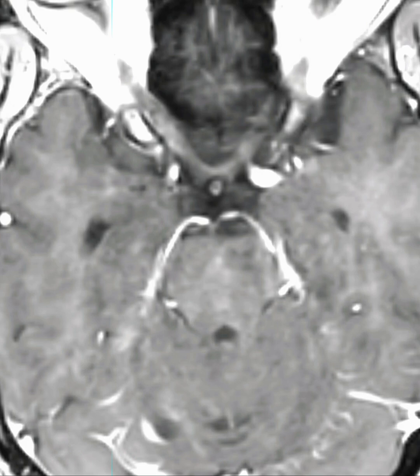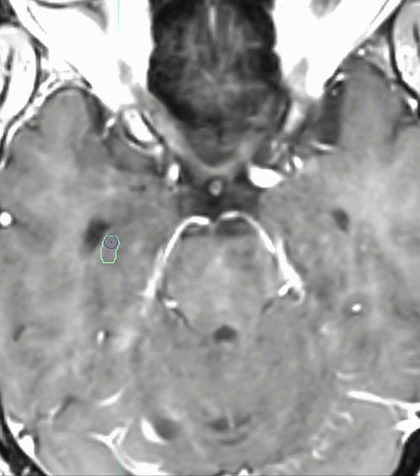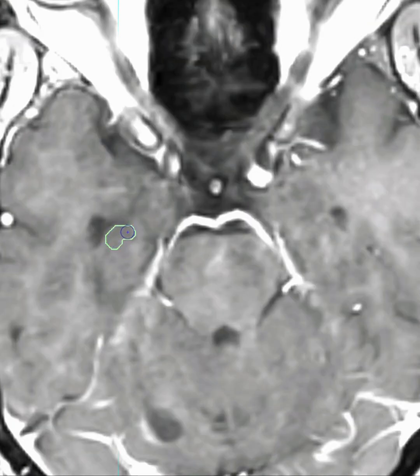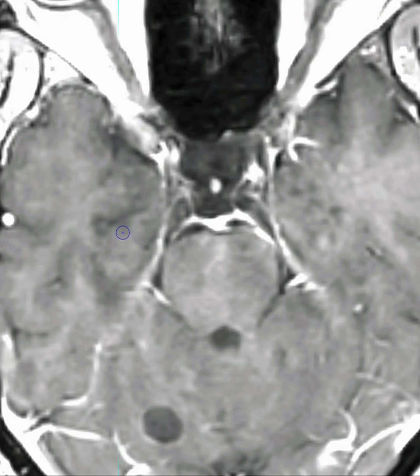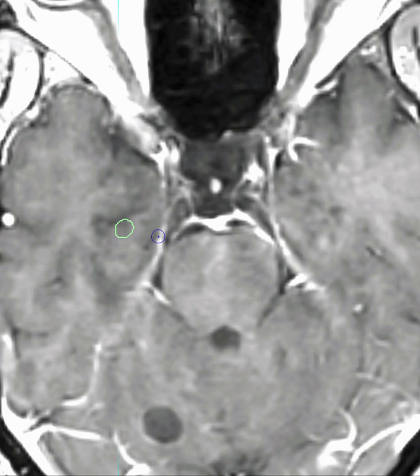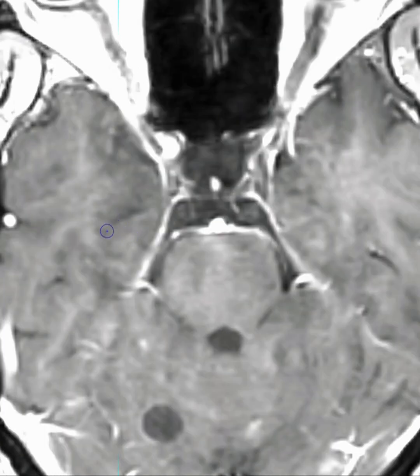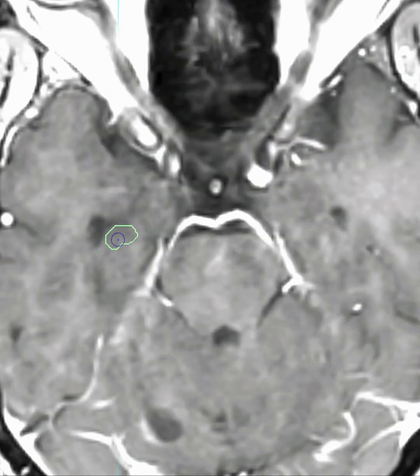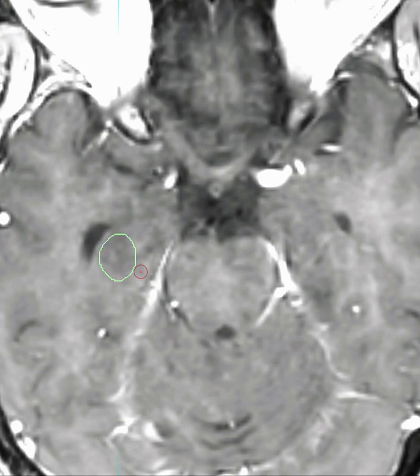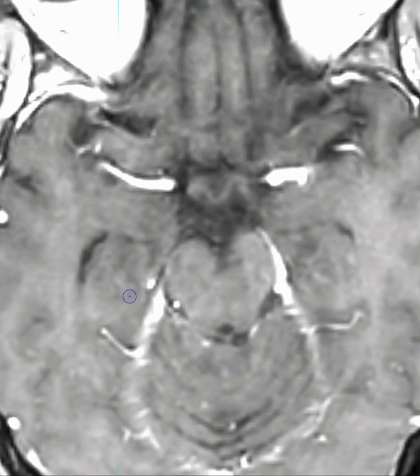This is going to be the beginning of the hippocampus contour. I'm going to draw this here and scroll down to make sure I'm beginning at the very lowest point — about where the tip of the ventricle disappears. I'm continuing to contour this, and if I'm not sure about a slice I can skip it and always interpolate.